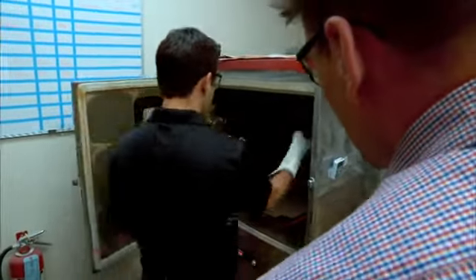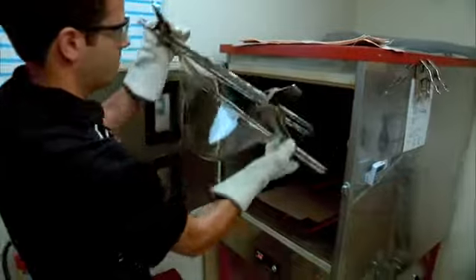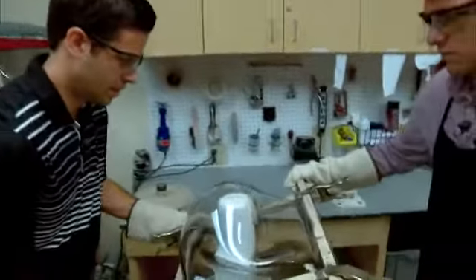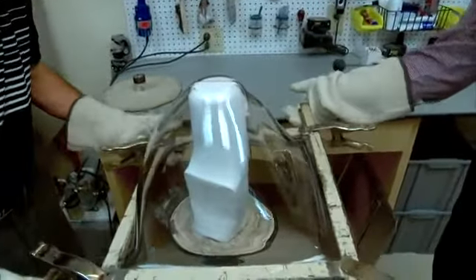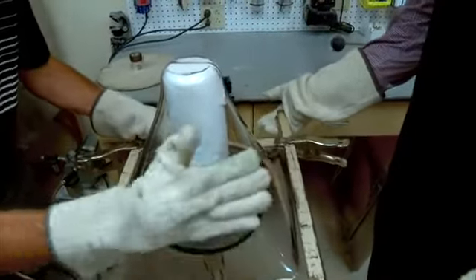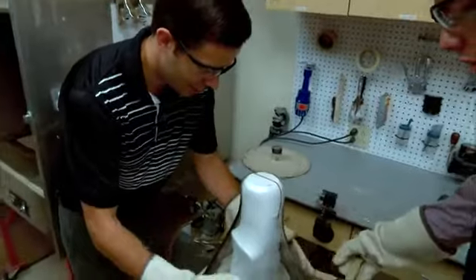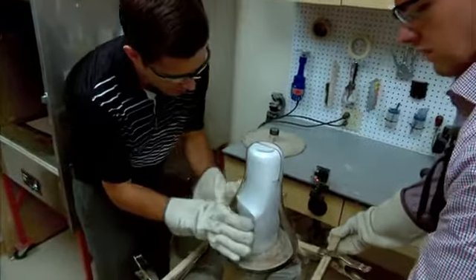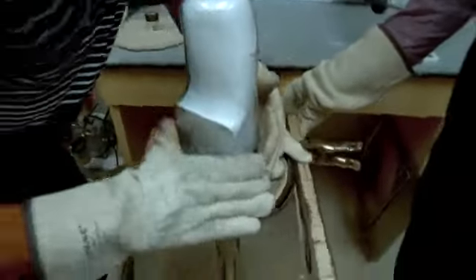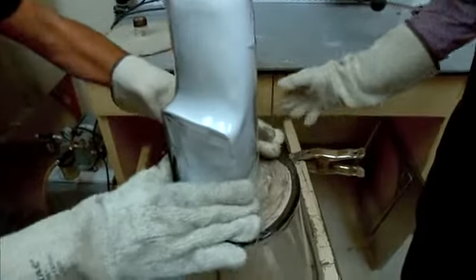Our plastic's ready to get pulled. We let it droop down easily, not stretching or pulling. We work it down to the wheel and let the plastic suck in with the vacuum backing running, pressing on the plastic to mold it in and working to make sure there are no wrinkles inside the mold.